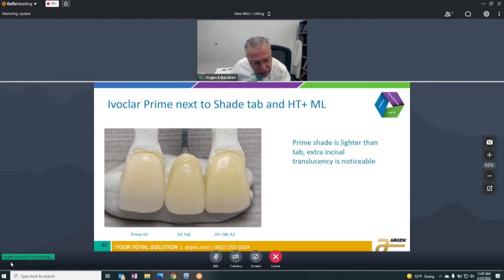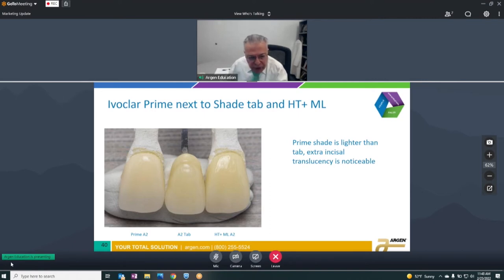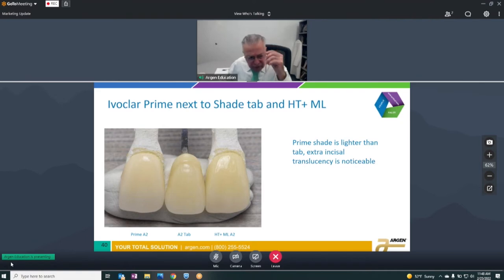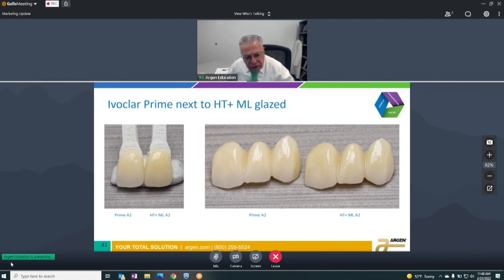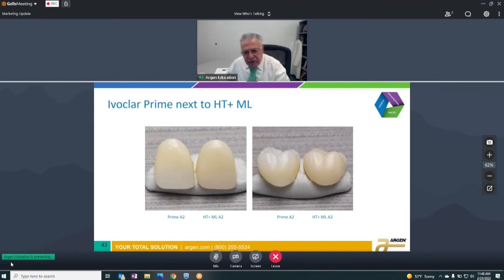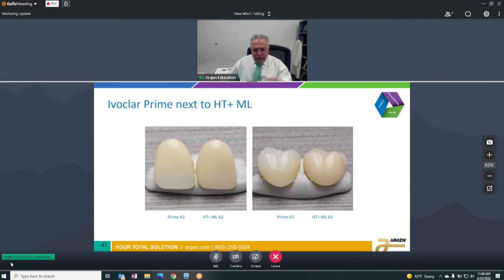On the HML, we have a uniform high-strength 1250 MPa across the entire thickness from incisal down to gingival, and 45% translucency. You're able to nest those bridges very well because modifications of the transition layers take into account the disc thickness. Looking at A2, the Prime is a little lighter than the shade guide, but the HML matches the shade guide fairly well. In the glazed units and bridge, you can see the Prime shows more incisal on the left — an exaggeration of what happens when you try to nest into a smaller disc.